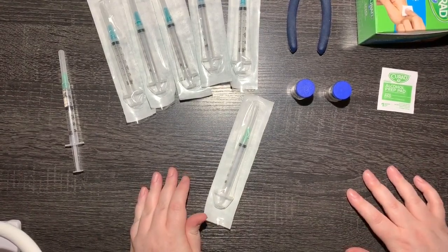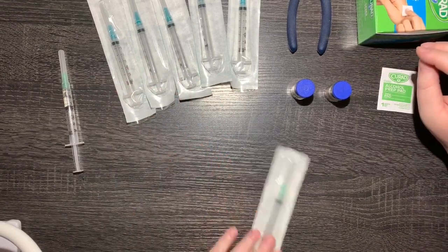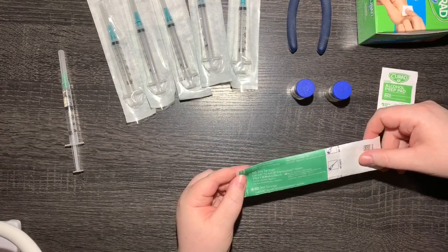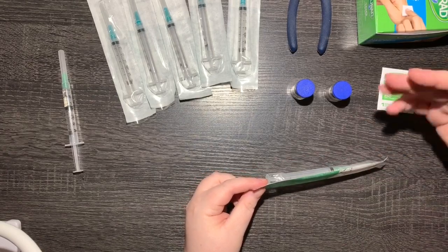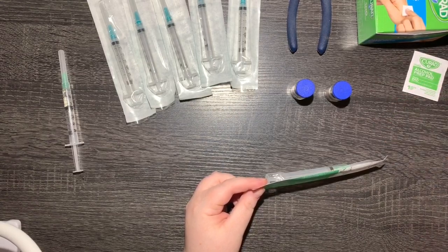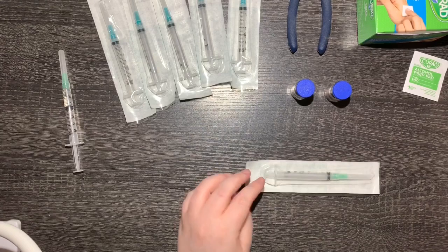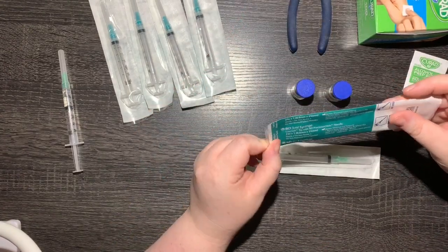I just wanted to show you guys how I pull out liquid. The first thing I do is get my needles ready. This is a 21 gauge needle — I use one to withdraw all the fluid, and I pre-fill about two vials worth, which gives me about five doses depending on weight. Aggie weighs about eight pounds, so she gets two mils at an eight milligram per kilo dose. I also have a bunch of 23 gauge needles — these are the actual ones I use to inject her with.